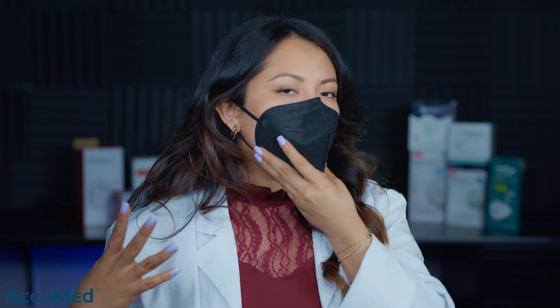Let's go ahead and try it on. The nose wire is actually pretty sturdy. This is a medium fit, so I am getting a pretty good seal around the face. I am struggling a little bit to adjust the nose wire to stop the leakage I'm getting from the bridge. There's not a lot of collapse, but I'm still getting some leakage at the nose.